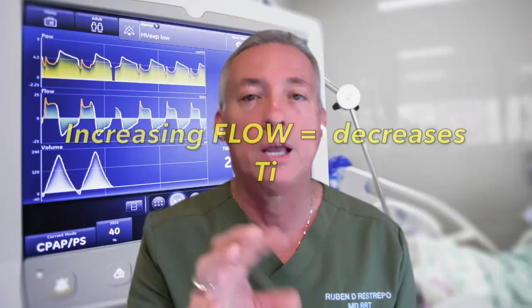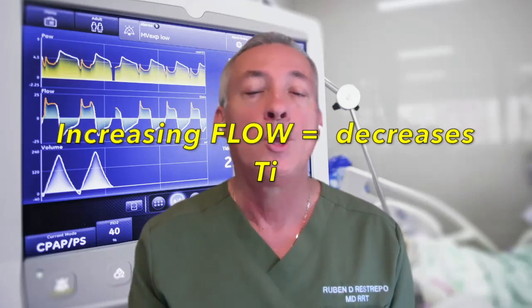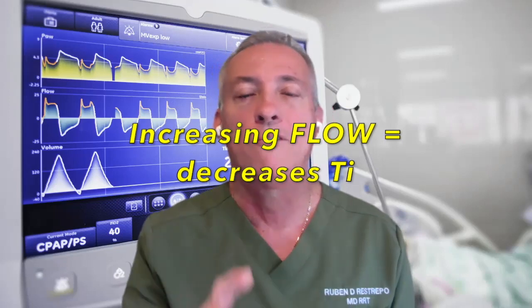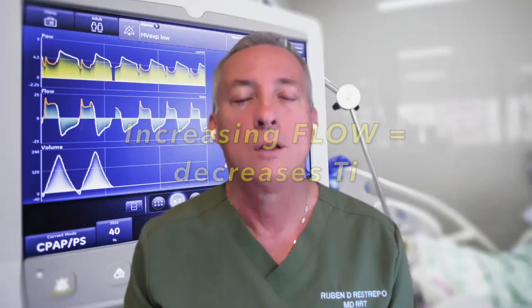If you increase the flow, and the setting for inspiratory time depends on the flow setting, you turn the flow up or down to modify the I time. In this particular case, you have to realize that you are not changing the volume. You're still delivering 420, but at a faster rate, and that will result in what? A decrease in the I time. Sometimes you may have to increase the flow to shorten the I time, and then you will have a longer expiratory time for patients with airway obstruction.